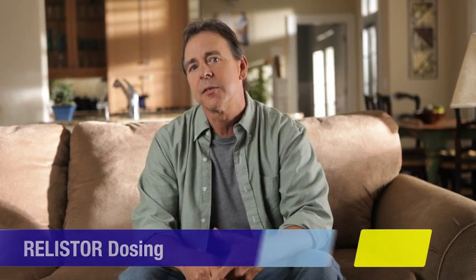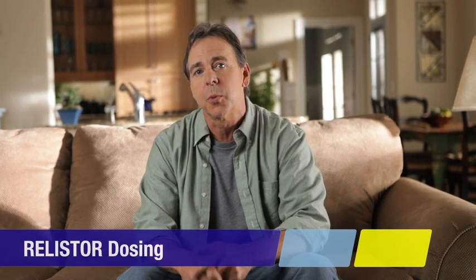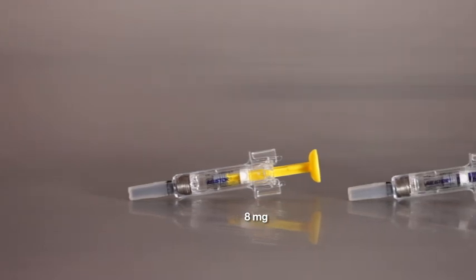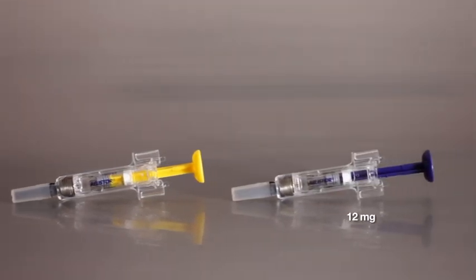If you're experiencing constipation from opioids for pain during supportive care for advanced illness, your dose may be the 8 milligram pre-filled syringe, the 12 milligram pre-filled syringe, or another dose that doesn't come in a pre-filled syringe. You'll usually take Relistor every other day as needed, but no more than once a day. And if you have any questions about the Relistor dose you should be taking, ask your healthcare provider. Take Relistor exactly as your healthcare provider tells you.